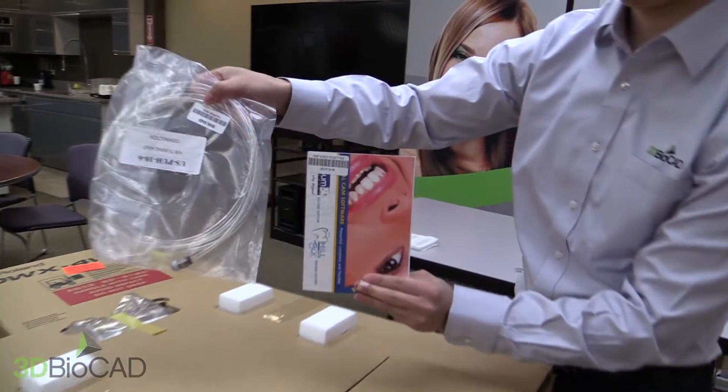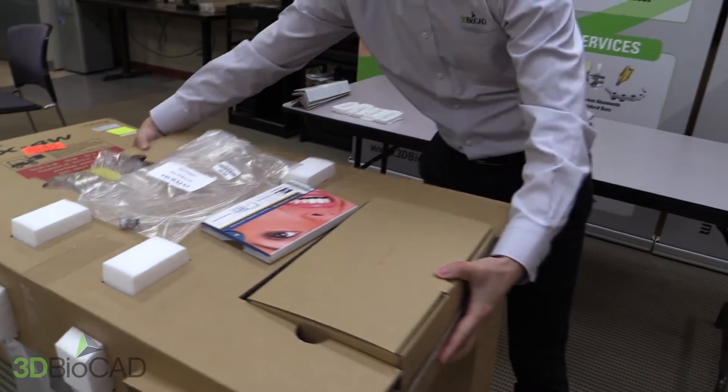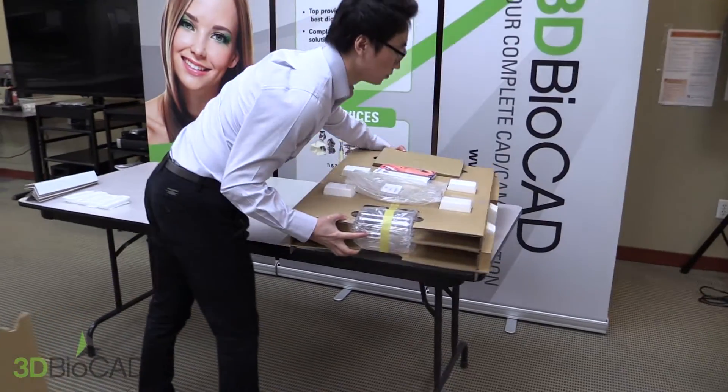Under the box top, you will see the cardboard top. This is a cushion to protect the unit and also to store the secured items inside.